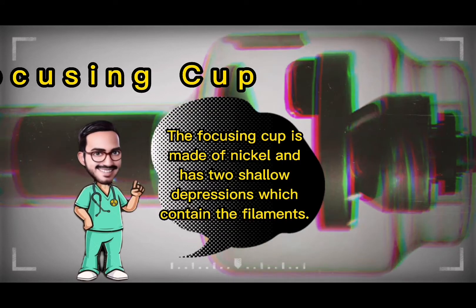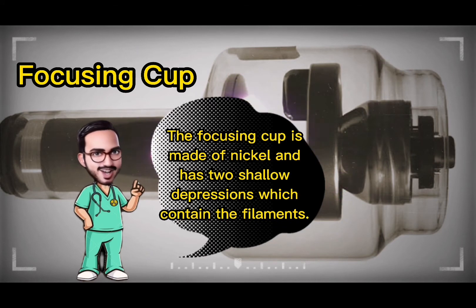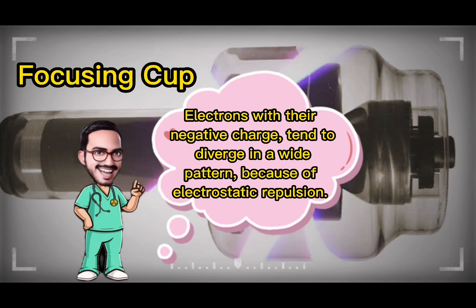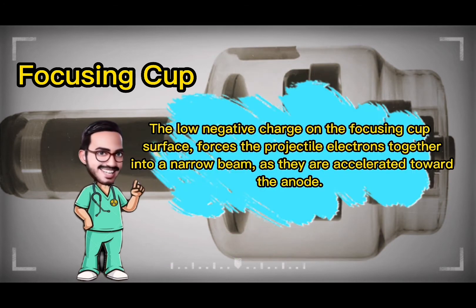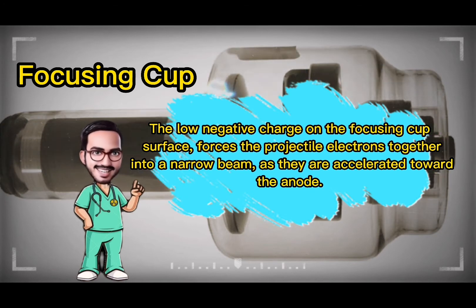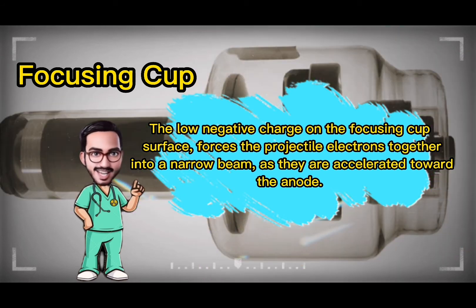The focusing cup is made of nickel and has two shallow depressions which contain the filaments. Electrons with their negative charge tend to diverge in a wide pattern because of electrostatic repulsion. The low negative charge on the focusing cup surface forces the projectile electrons together into a narrow beam as they are accelerated toward the anode.